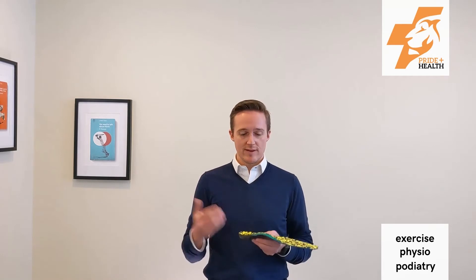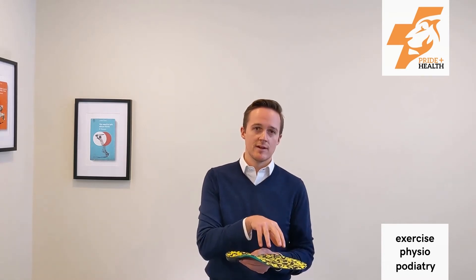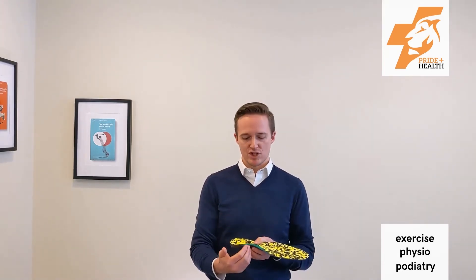So how do you get a pair of orthotics, and what's the difference between a custom orthotic from a podiatrist and something off the shelf at a chemist or supermarket? An off-the-shelf device is very generalized — it provides a mild nudge underneath lower-arched feet but isn't specific in terms of how hard you push or where. Pushing towards the back of the foot affects the heel and leg; pushing further into the arch and forefoot affects areas like the big toe and bunion development. With off-the-shelf devices you get a general, mild push pretty much under the arch — great for some people, but it doesn't fix everything for everyone.